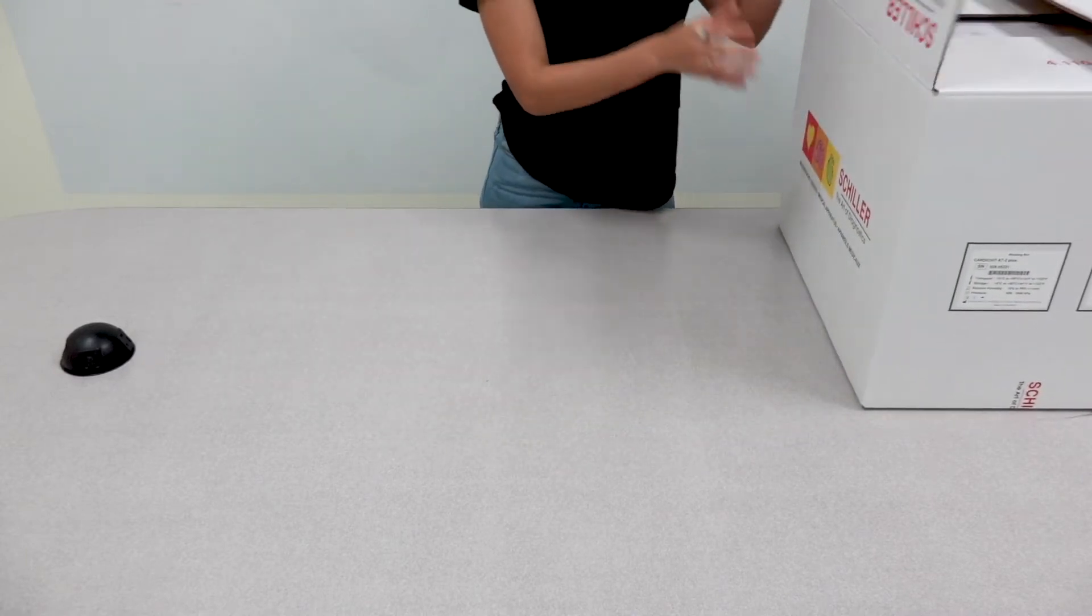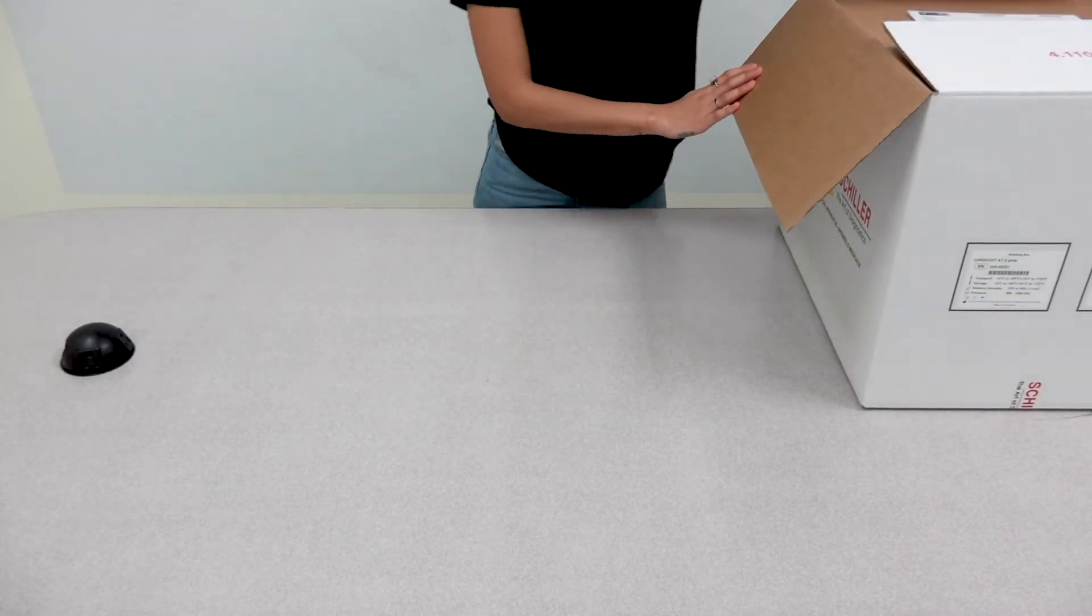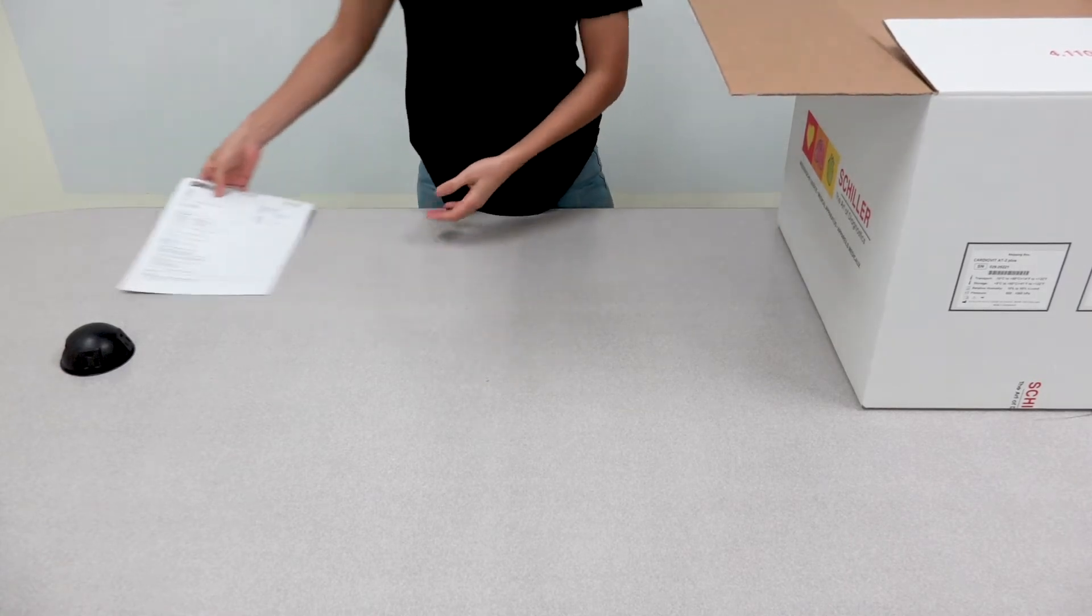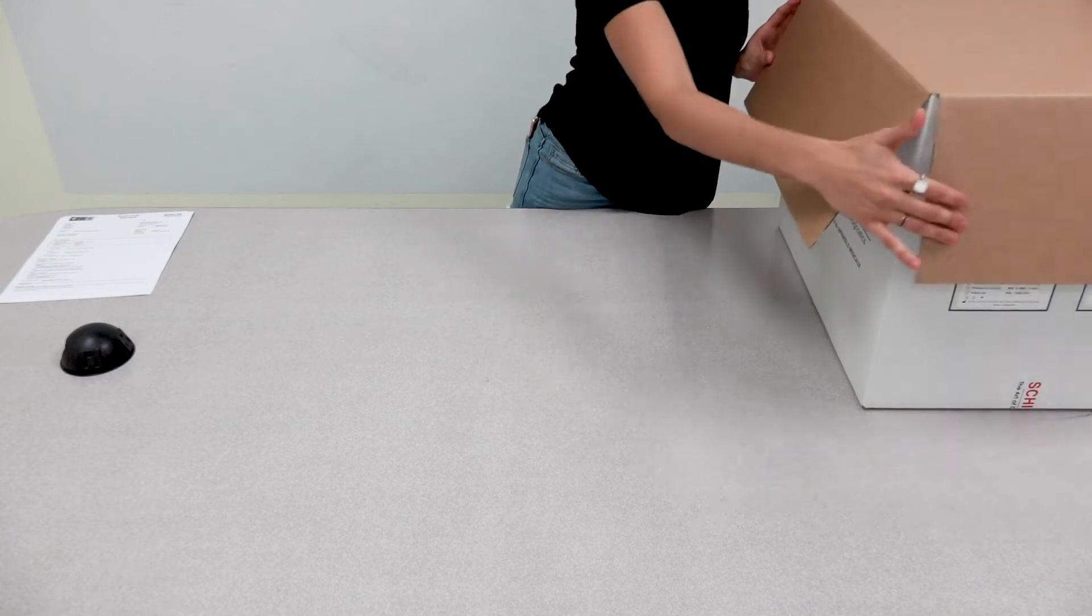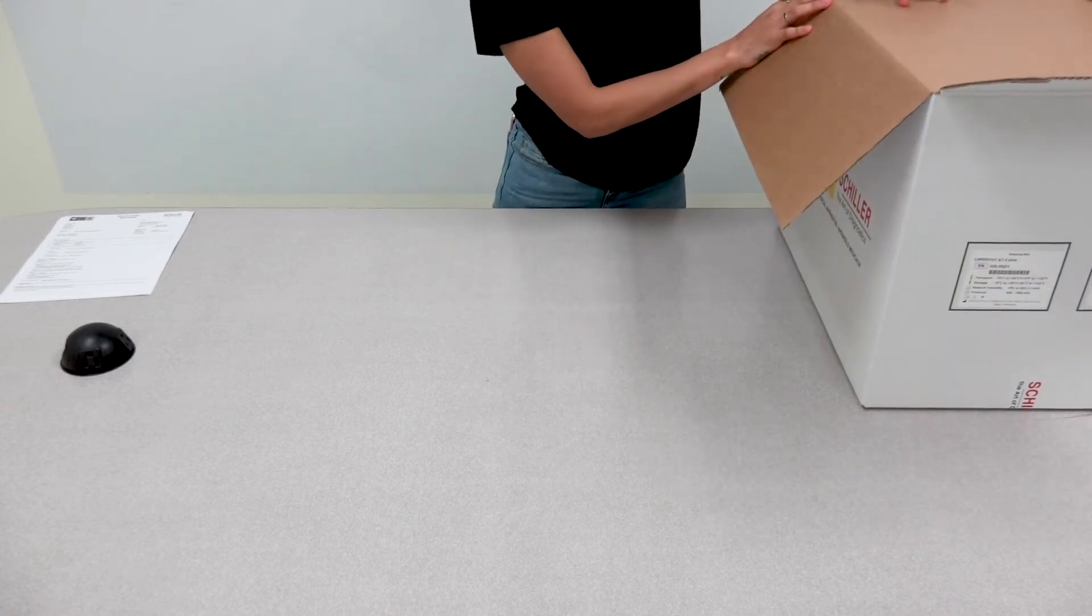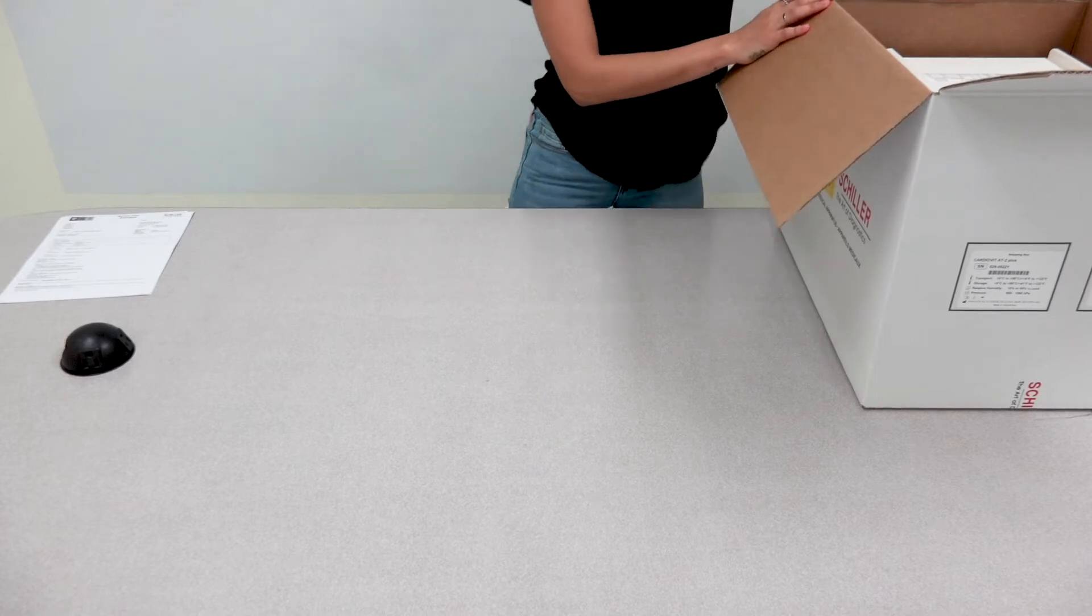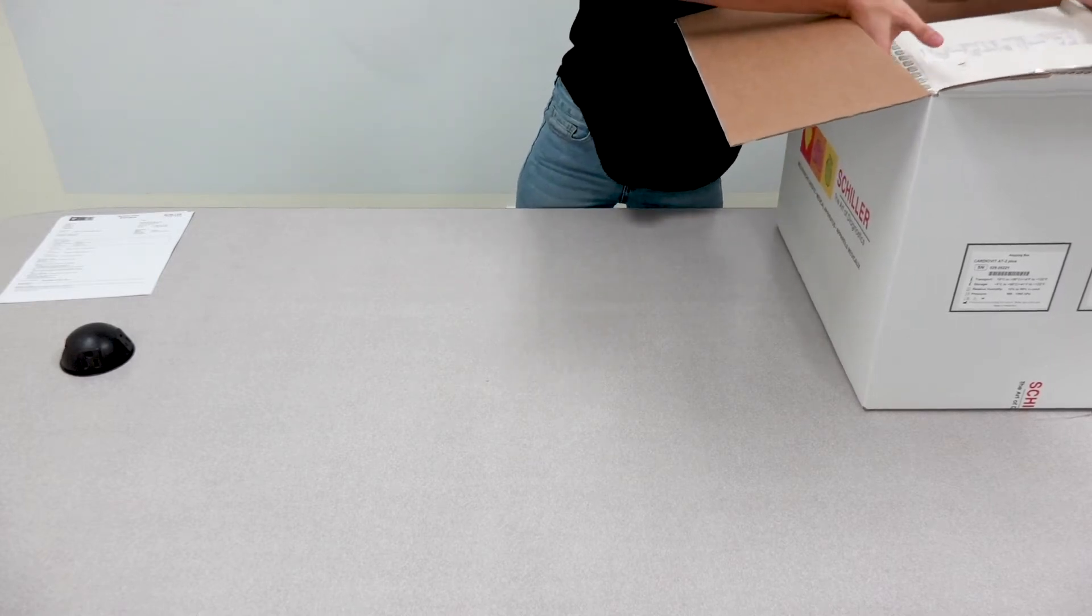Upon opening the box, you will find your device's documentation paperwork. You'll also find a cardboard covering, and underneath that you'll find your AT2 Plus.